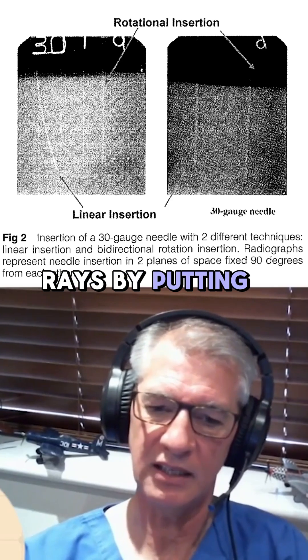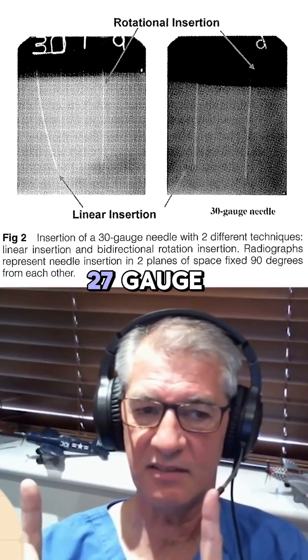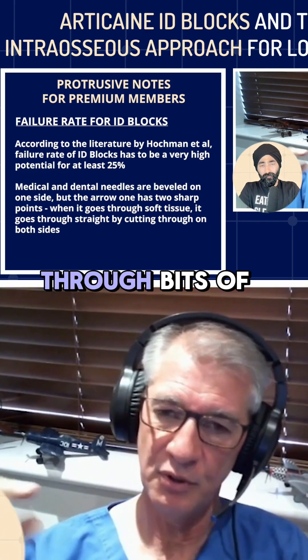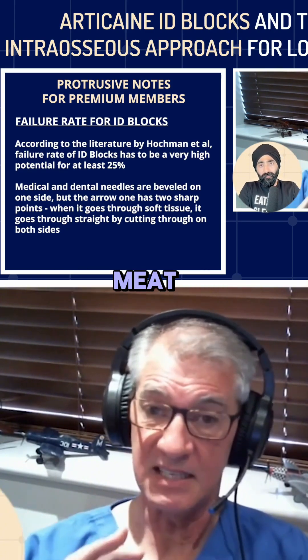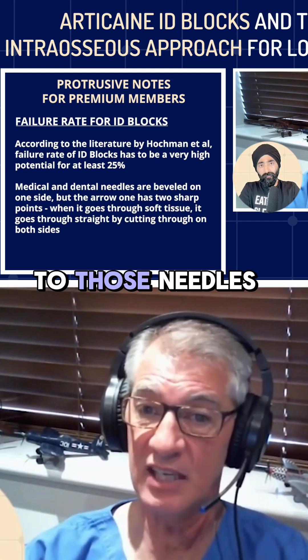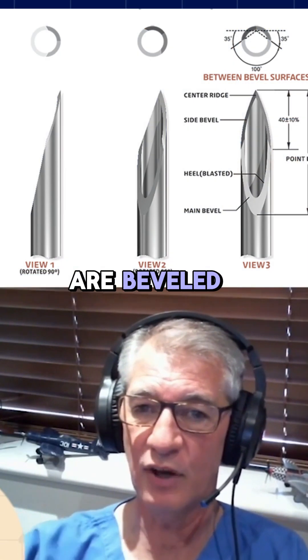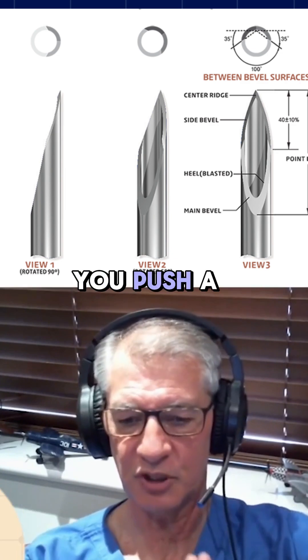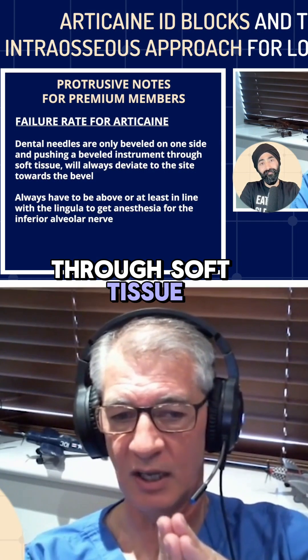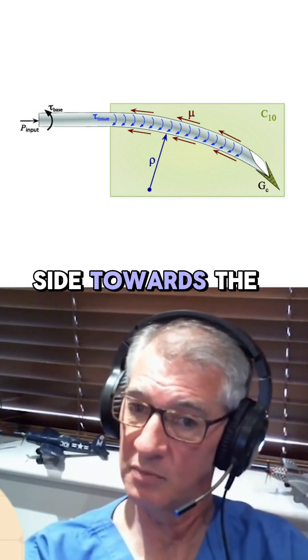they took x-rays by putting ID block needles — specifically 27 gauge, one and a quarter inch needles — through bits of meat and then x-rayed what was happening to those needles. Bearing in mind that dental needles are beveled only on one side, if you push a beveled instrument of that nature through soft tissue, it will always deviate to the side towards the bevel.